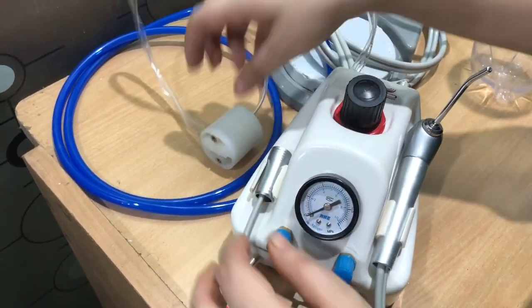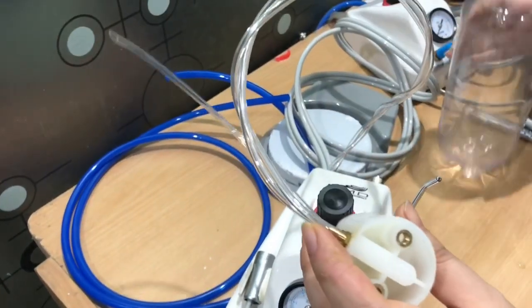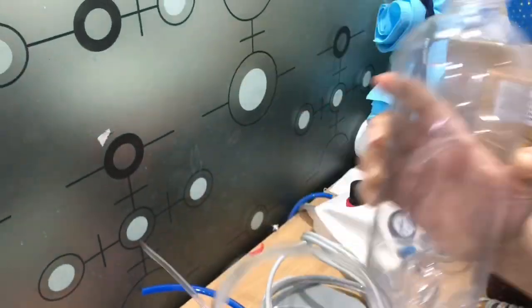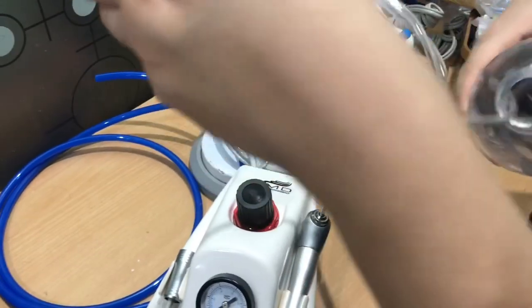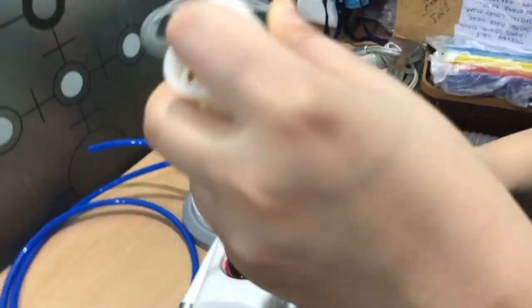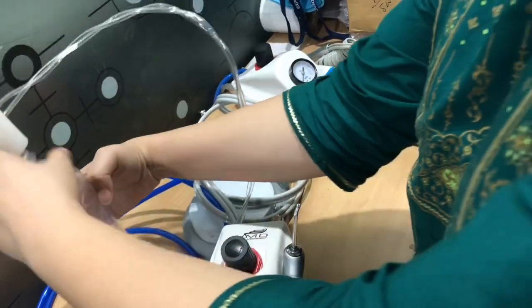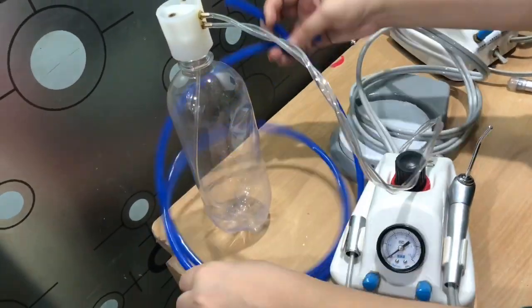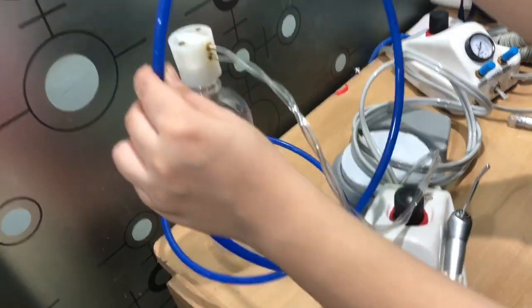You will just need to place this. You can just tighten up like this. The tube will directly connect to your air compressor.